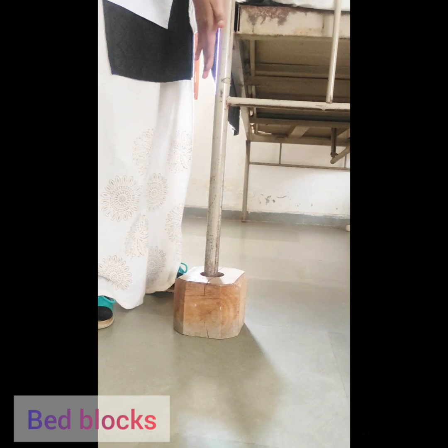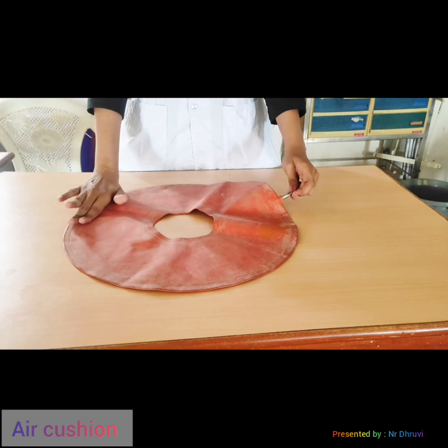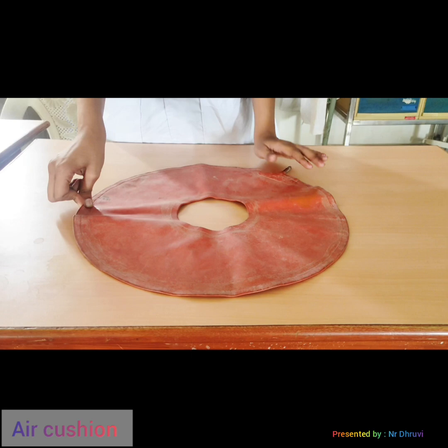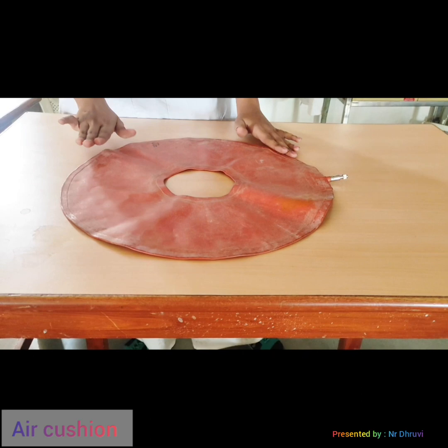The next device is the air cushion. You have to use the air cushion with a cover on it, and it is filled with air. Air cushions are made up of rubber and are inflated with air. They are used to take the weight off the sacral region, prevent bed sores at the buttocks, and absorb the shock of motion. They should always be used with a cover.